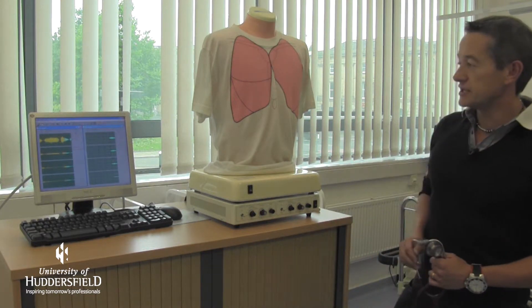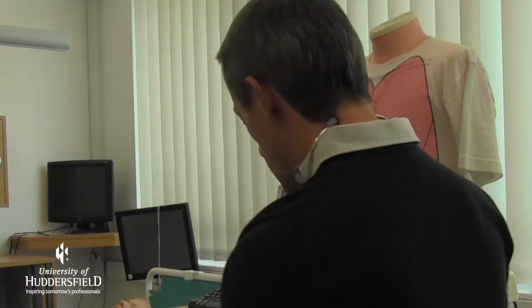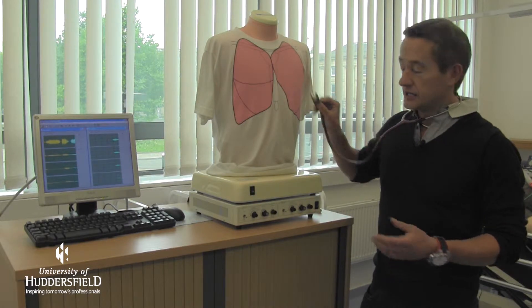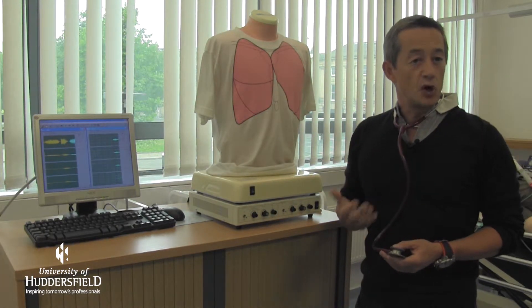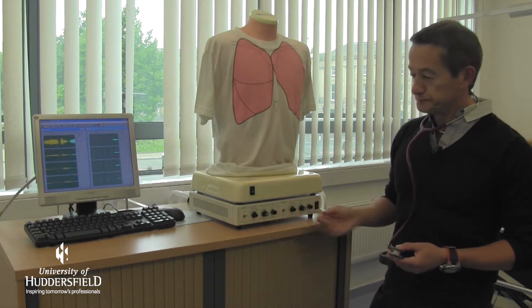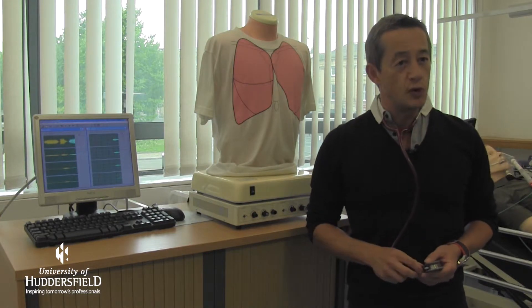So on this particular mannequin we can simulate realistic breath sounds. We can teach a student how to use a stethoscope and how to listen to the chest, and we can have normal sounds and we can have abnormal sounds. This particular one is set for an abnormal wheeze. As the student is listening they will find the actual area that is abnormal. If they can't find that sound we can actually flick a switch and now we can hear this abnormal wheeze.